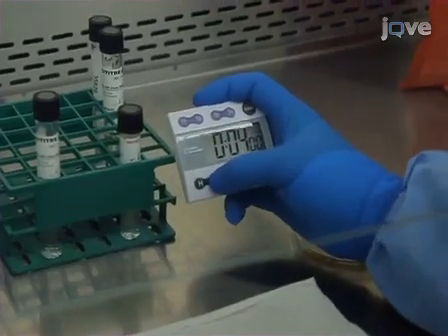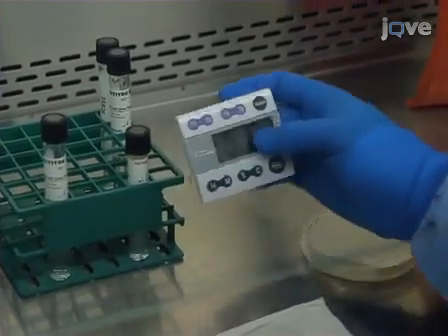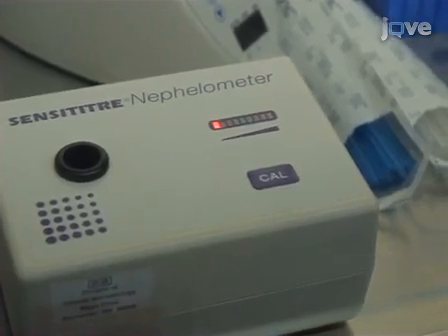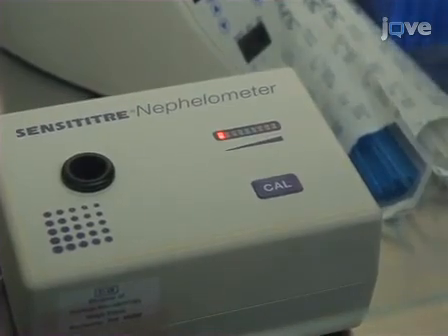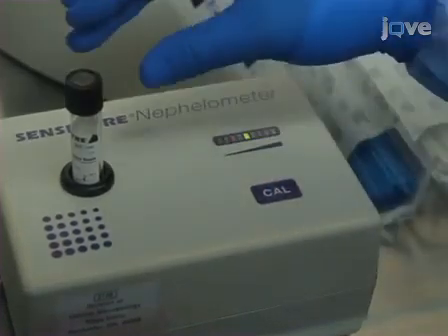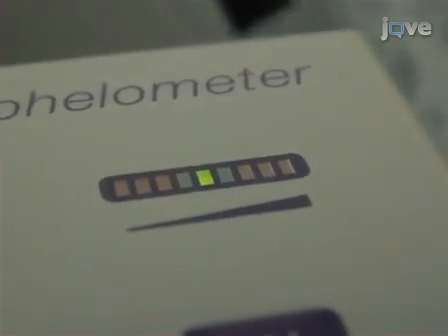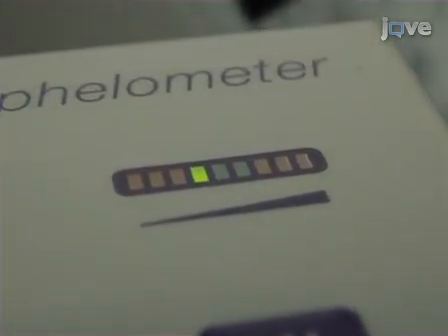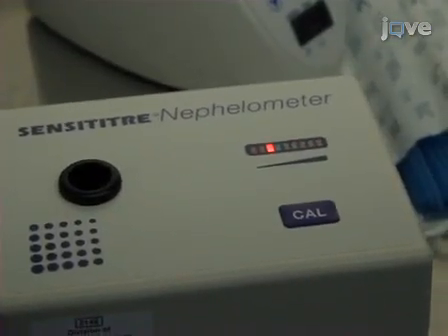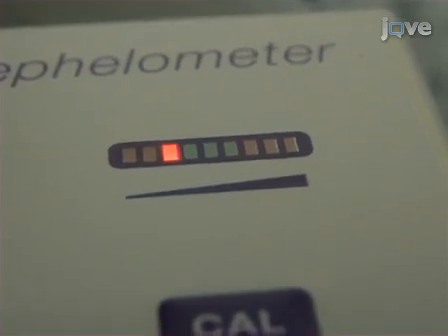Once the McFarland standard is matched, allow the inoculum to settle for 15 minutes to allow larger clumps of bacteria to settle. Next, use a nephelometer to measure the density of the suspended bacteria. To zero the nephelometer, first place a blank saline bead tween tube in the nephelometer. Press the calibrate button to zero the instrument. Then place the McFarland 0.5 standard in the nephelometer and press the calibrate button again. Once the instrument is calibrated, remove the McFarland standard and insert the inoculum.